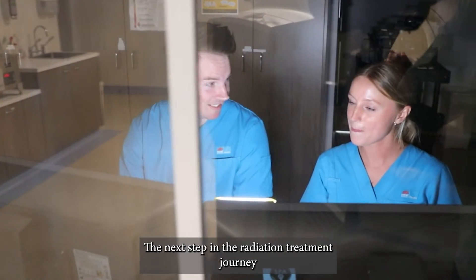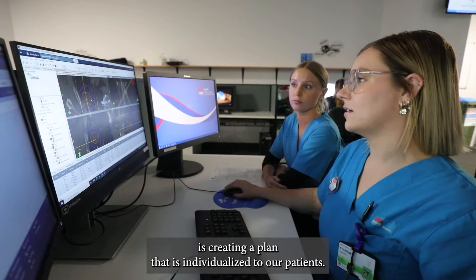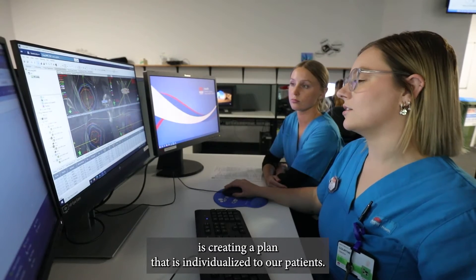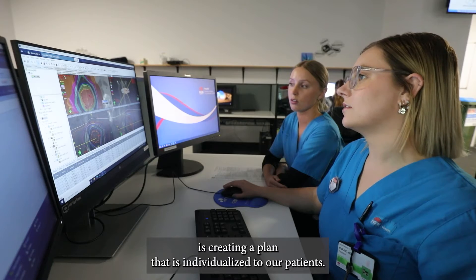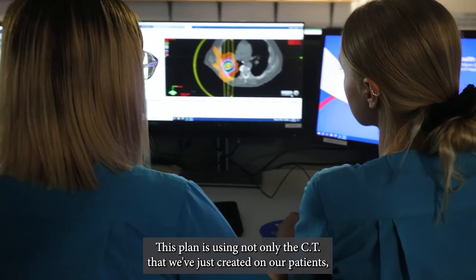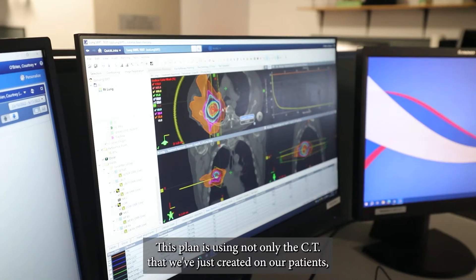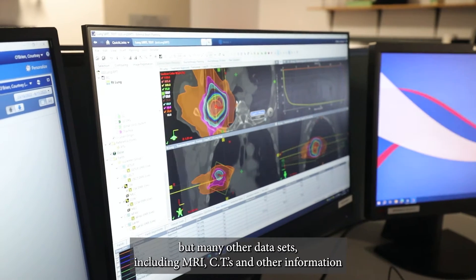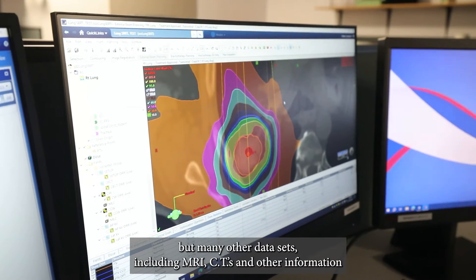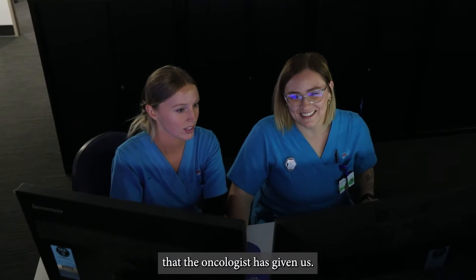The next step in the radiation treatment journey is creating a plan that is individualised to our patients. This plan uses not only the CT that we've just created, but many other data sets including MRIs, additional CTs, and other information that the oncologist has provided.